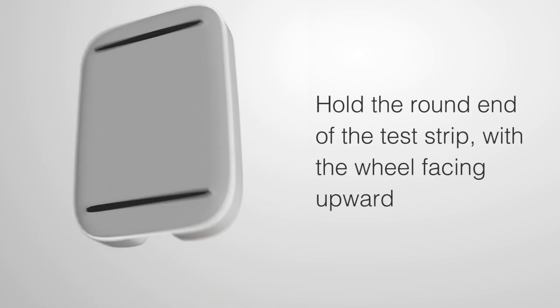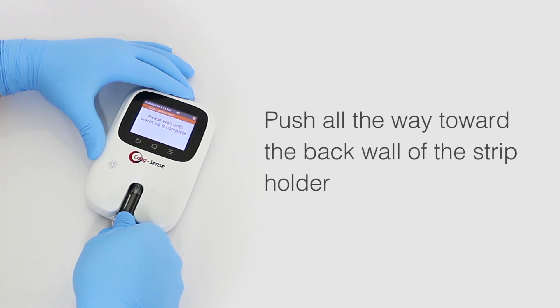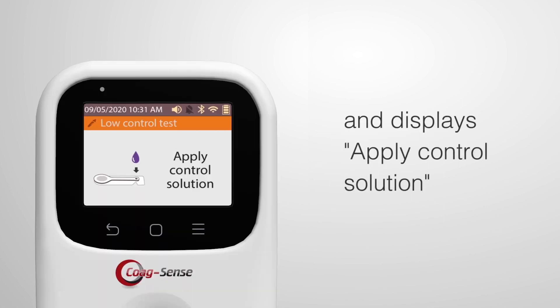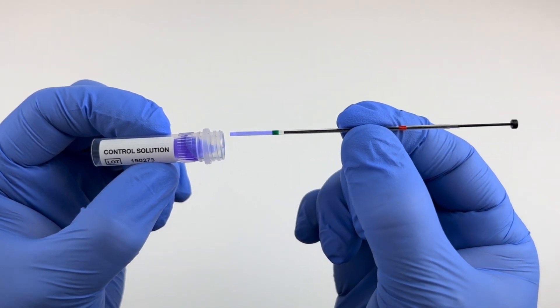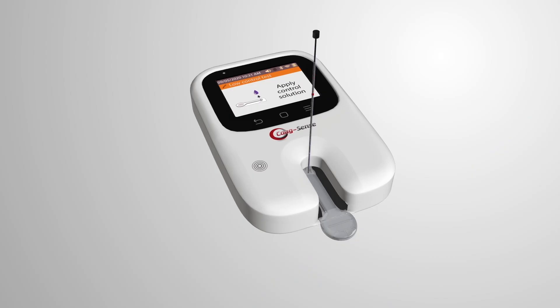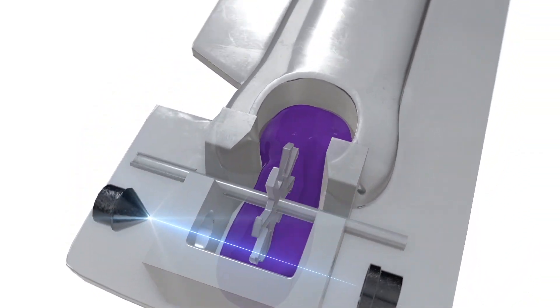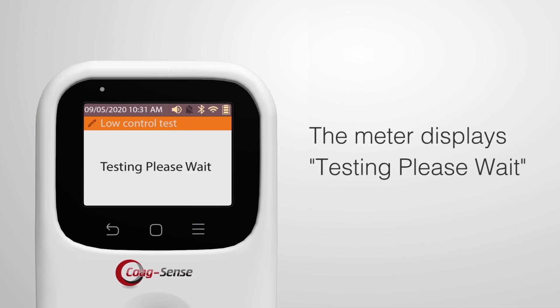Hold the round end of the test strip with the wheel facing upward and gently insert the strip completely into the meter. The strip fits snugly and should be pushed all the way toward the back wall of the strip holder. The display will show a countdown of time remaining during the warm-up cycle. The meter beeps once and displays 'Apply control solution' when ready. Insert the transfer tube into the control activation solution and let capillary action fill until solution flow stops at the green band. Insert the transfer tube tip into the sample application well of the test strip, touching the tip down at the flashing green light in front of the wheel, then depress the black plunger completely to dispense the activation solution.